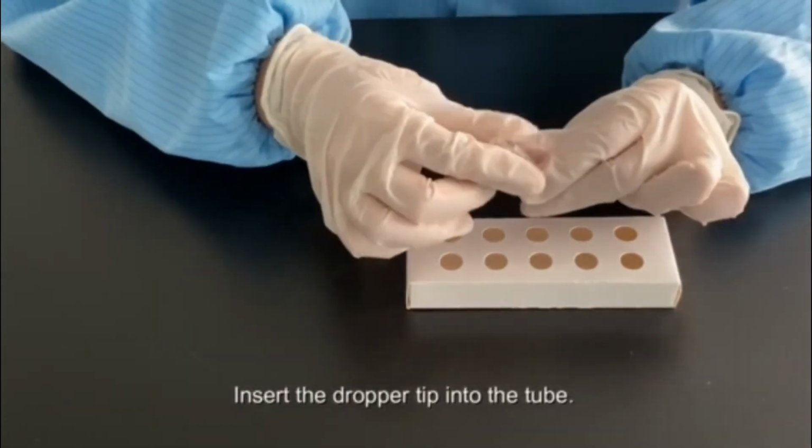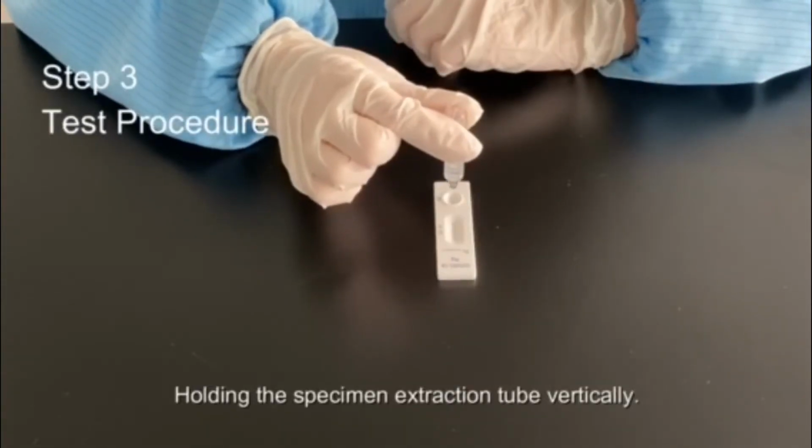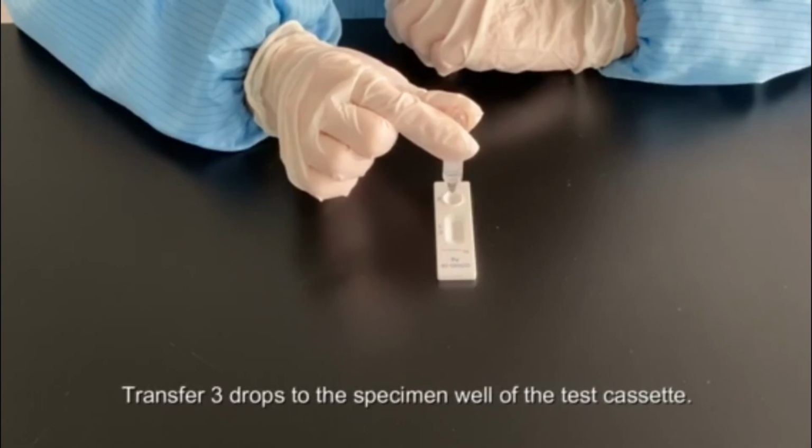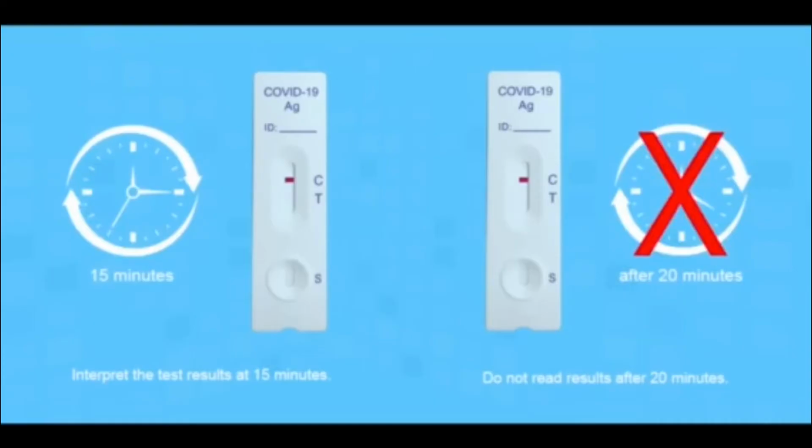Insert the dropper tip into the tube, holding the specimen extraction tube vertically. Transfer 3 drops to the specimen well of the test cassette. Interpret the test result at 15 minutes. Do not read the result after 20 minutes.